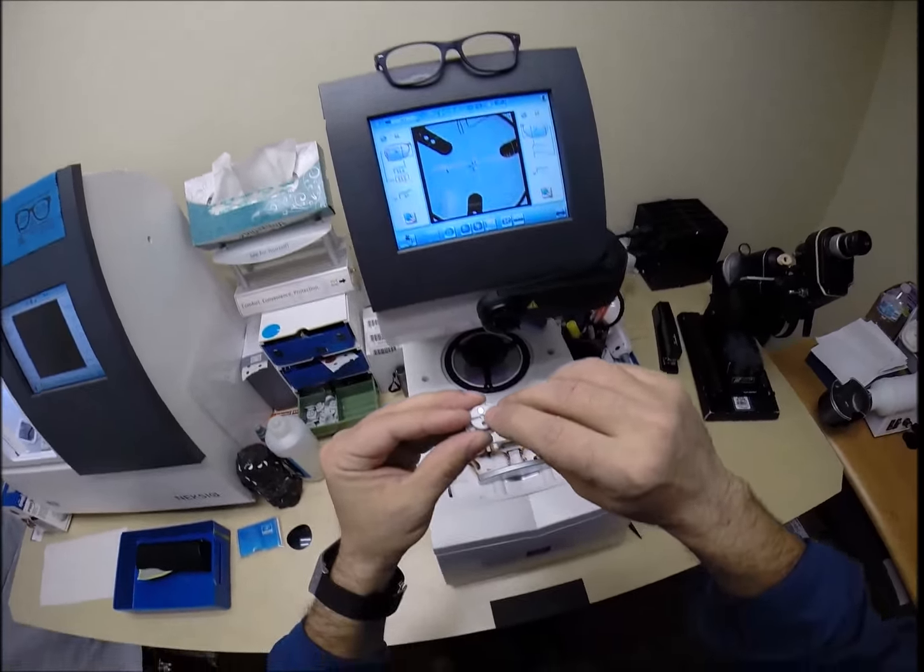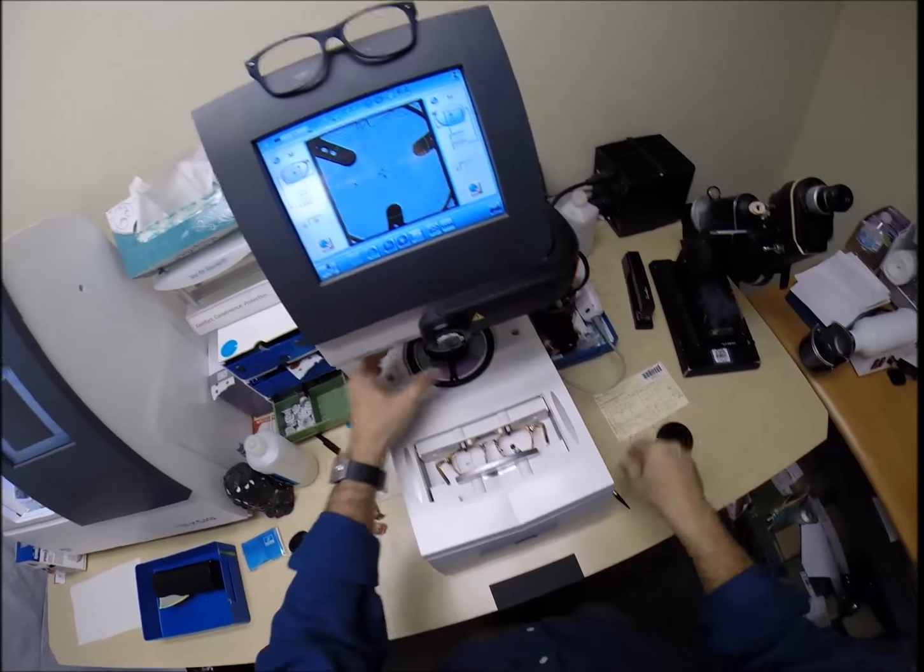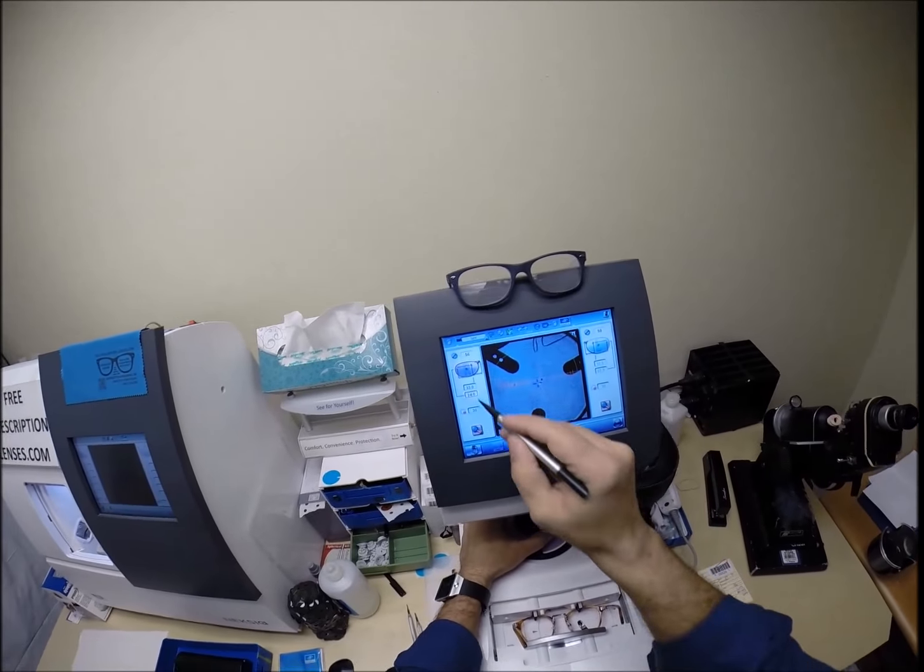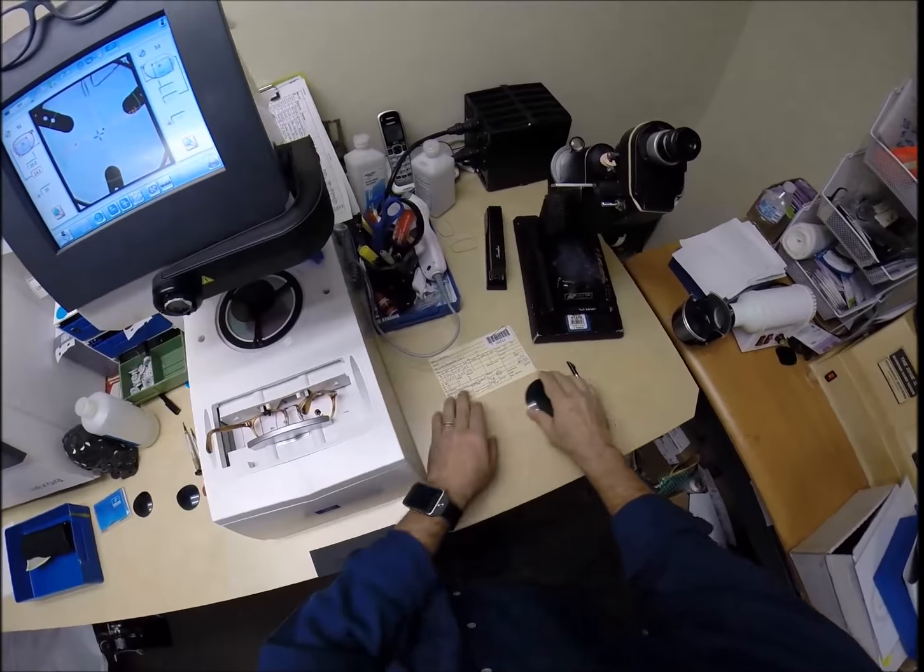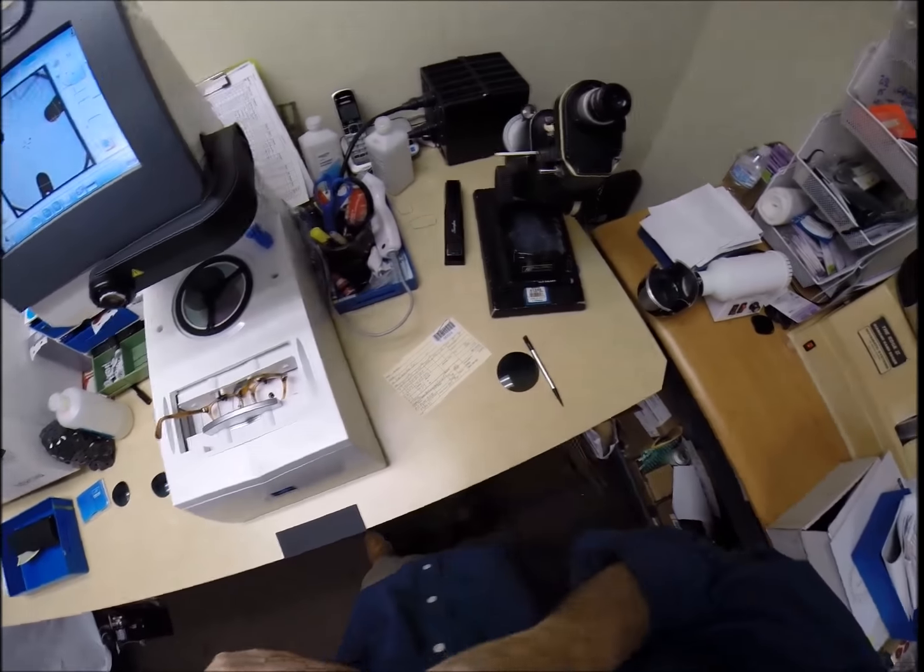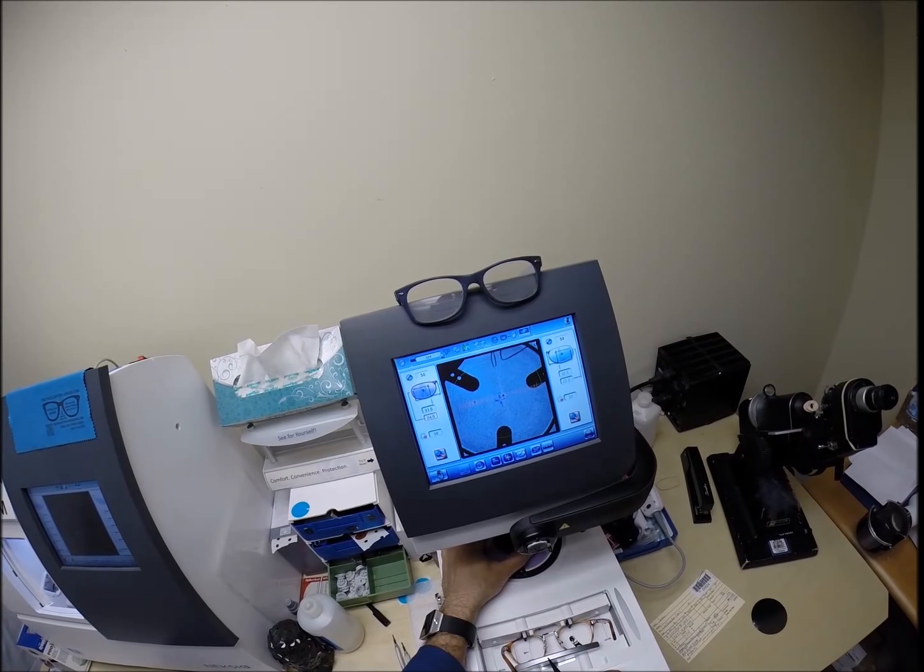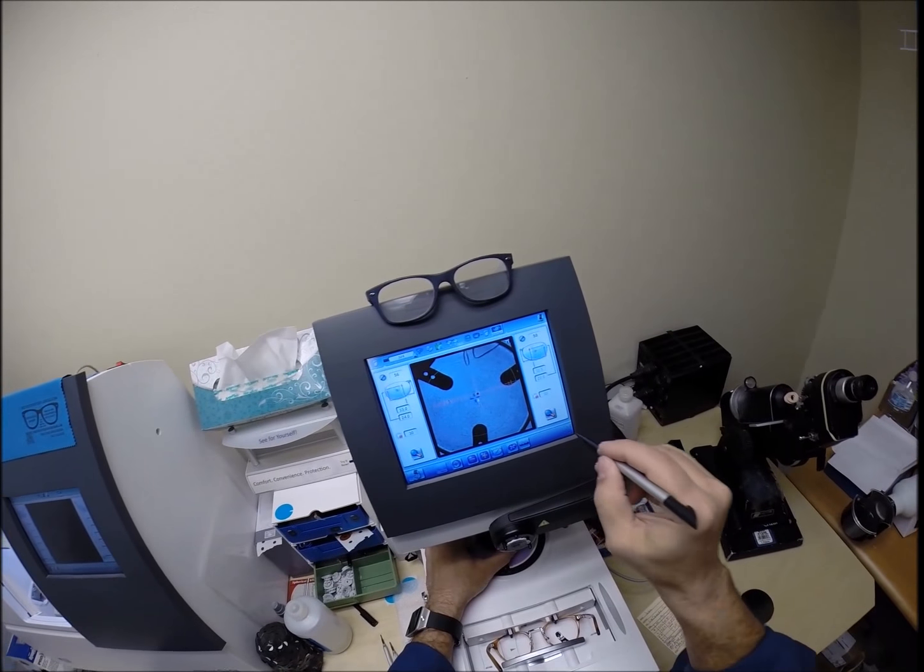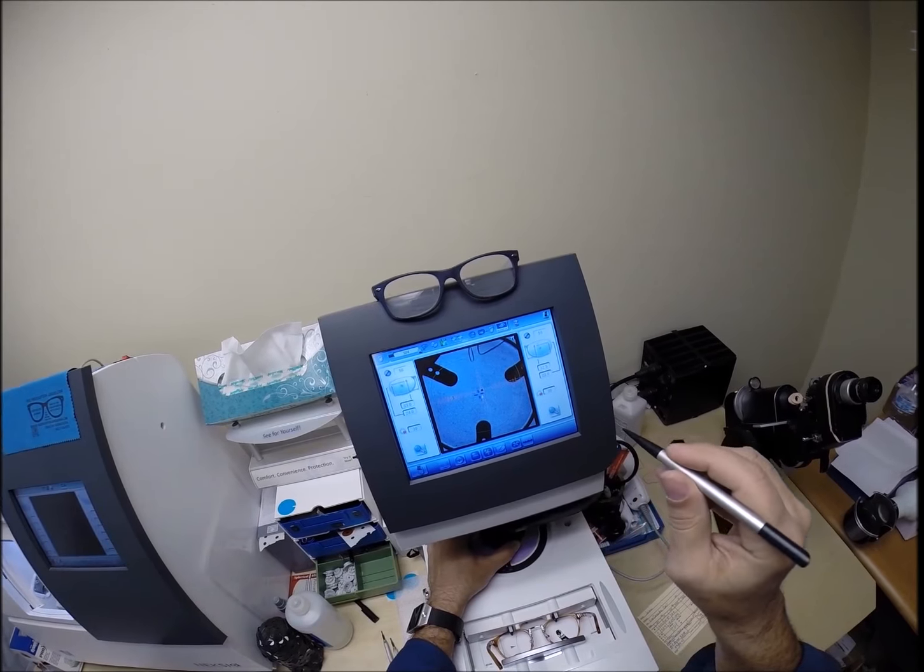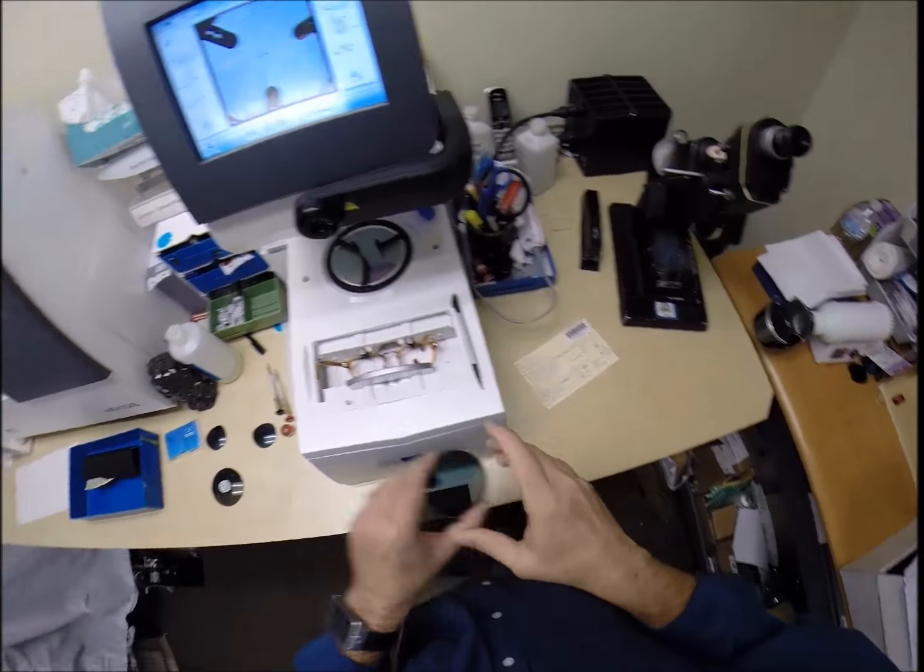Now, on the back is a silver button. That is a magnet. That's going to do its job twice today. The first time, it's going to attach itself to another magnet here in the arm. Get everything lined up. Pupillary distance, OC height. And let me mark that this is at 24. So, I know where to place it in the future. Get everything lined up perfectly. Hit that button. The arm comes down, places the block on to the right lenses.